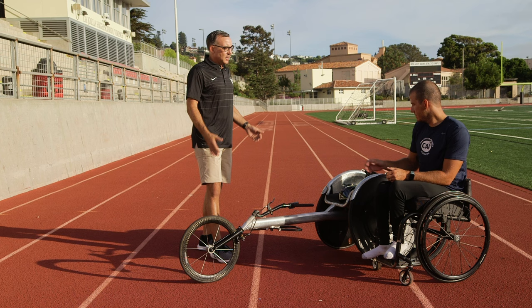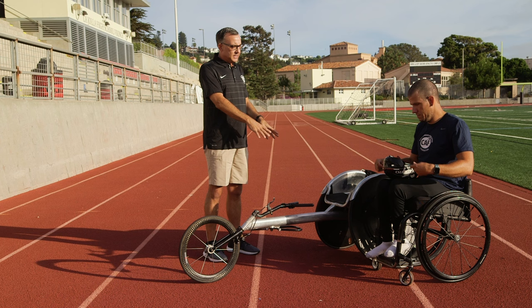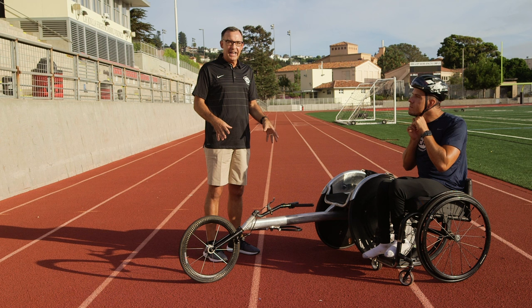The first position we want Eric to show you is sitting with your feet down. In this chair, this is not really made for this, but we're going to demonstrate it. We would normally have a footplate if this is the way the rider wanted to compete.